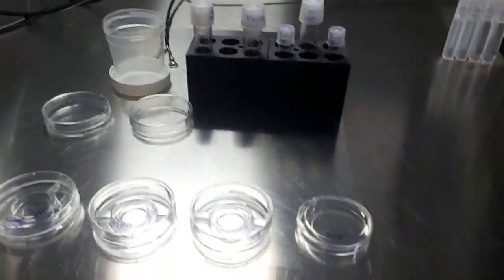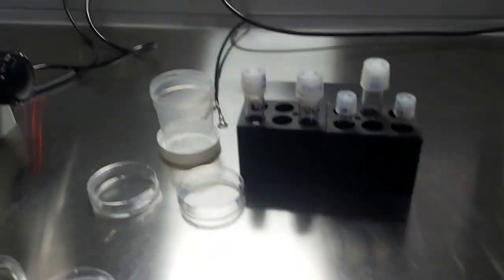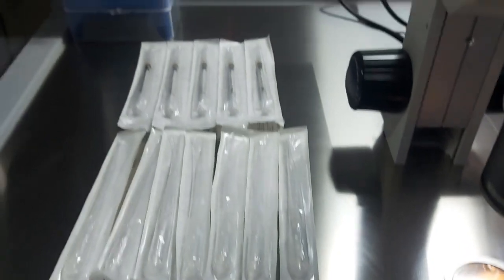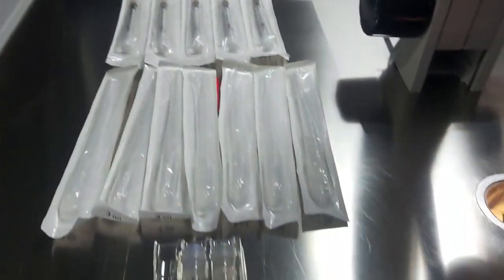So, this is the dish preparation for one pickup. The patient has 10 to 12 follicles.